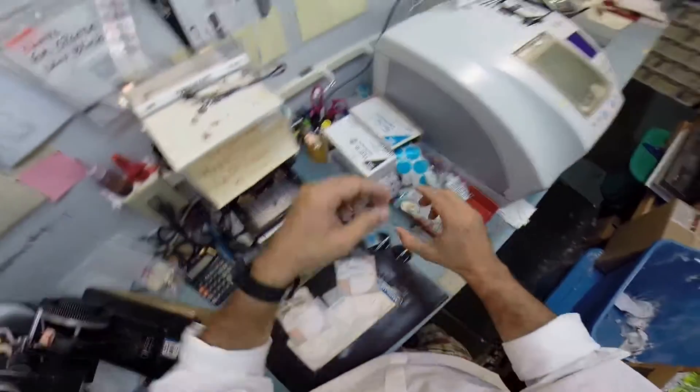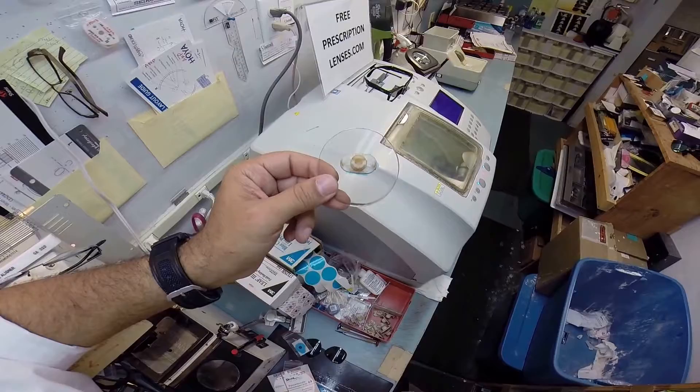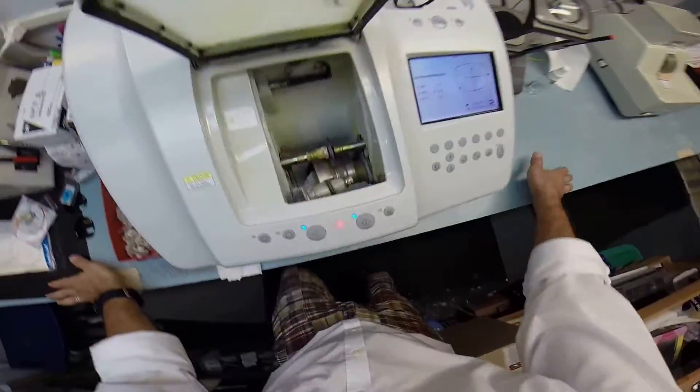The third feature that I like is it comes with the best scratch coating on any lens. It's a million dollar machine that applies the anti-glare coating, so they put the best scratch coating possible to protect that million dollar investment.